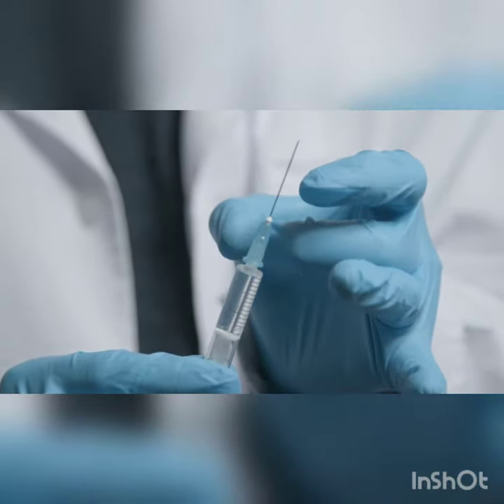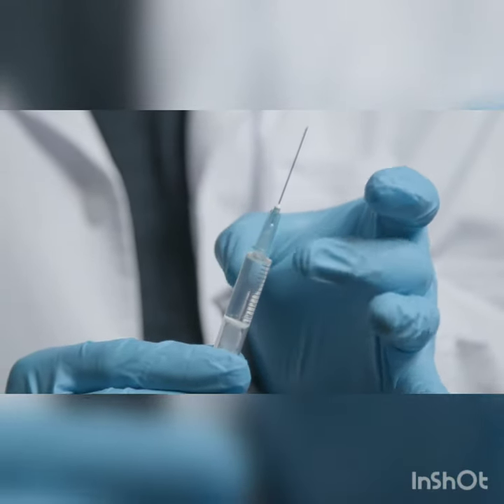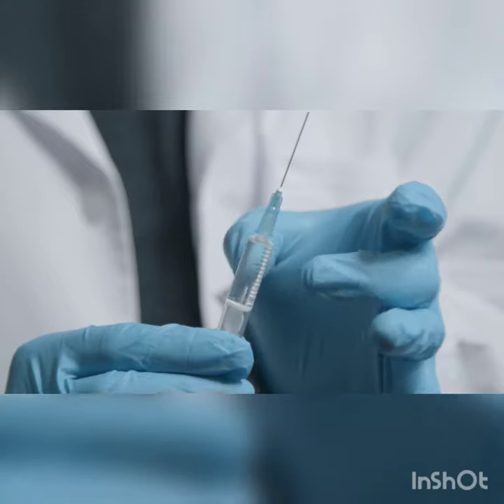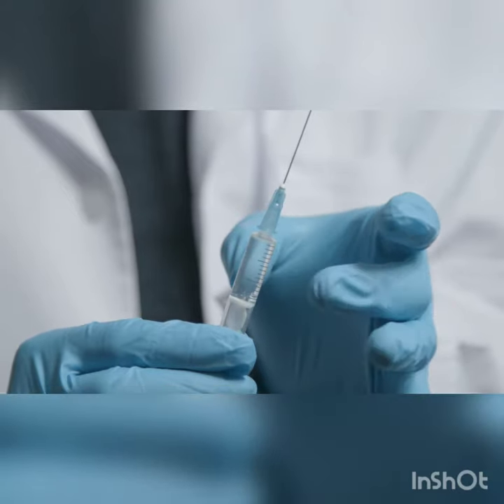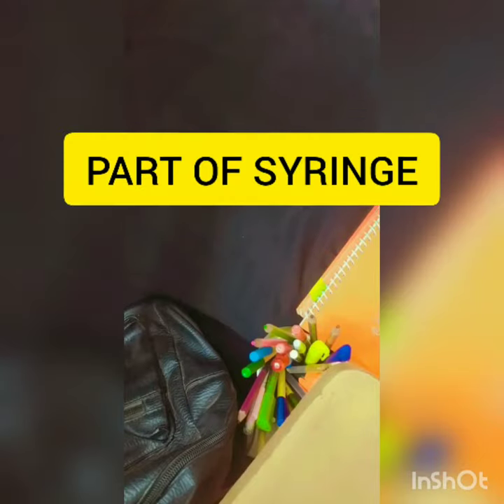Hello friends, how are you? I hope you all are doing well. I'm back with my new video. Today we will discuss about parts of syringes.